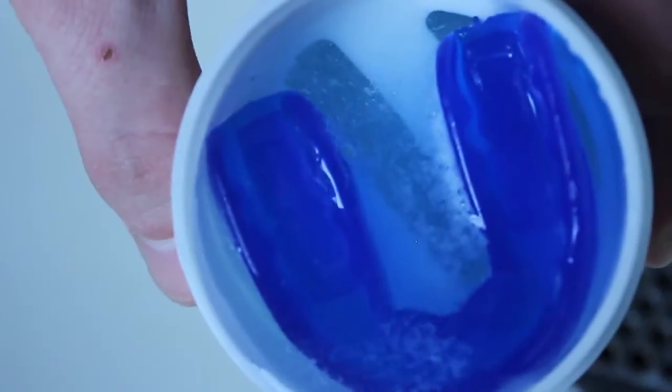Let the case sit and within 3-5 minutes the oral appliance should be clean of bacteria. Lastly, remove the top lid to pour out the contents and close the lid to store.